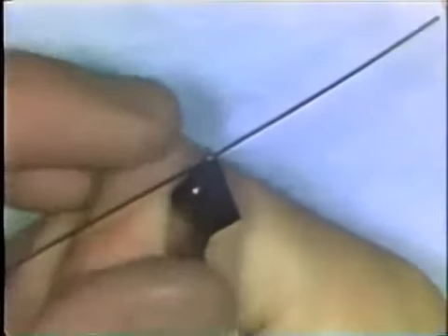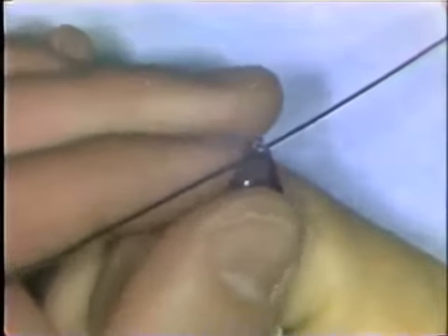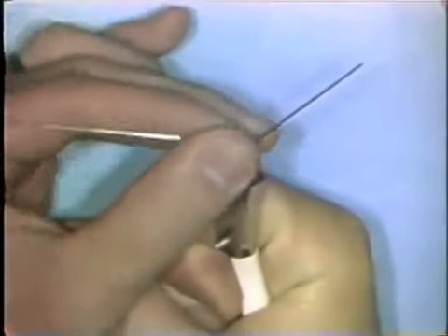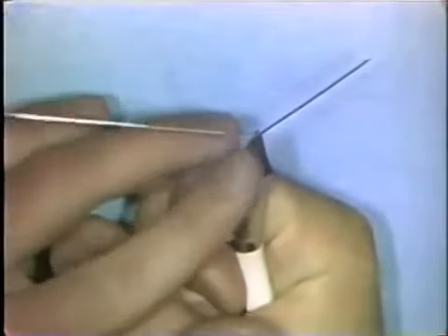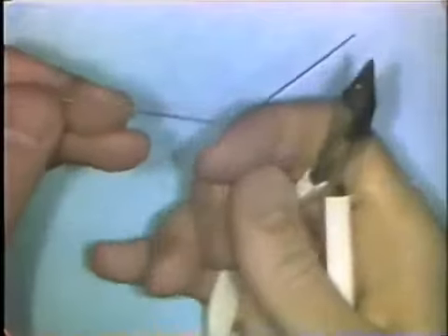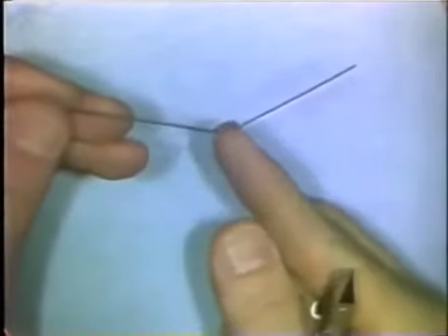Place your left thumb or left finger right on top of the wire, in contact with the wire and the plier beaks, and apply pressure towards the round beak. You push directly on the wire and also directly on the beaks of the plier. You make the bend about 30 degrees, or one-third of the way, usually.